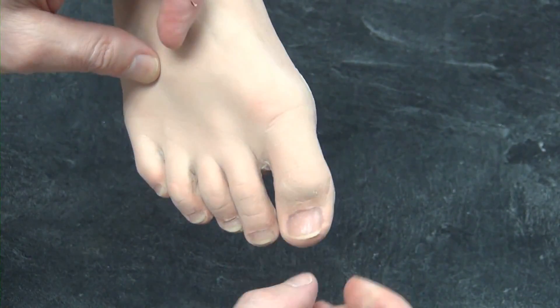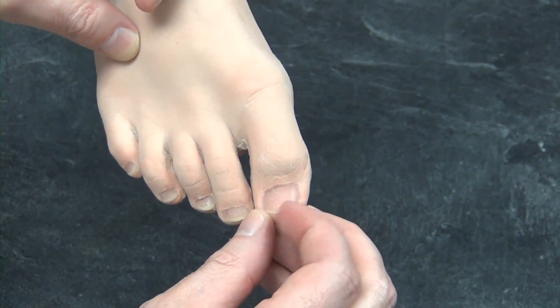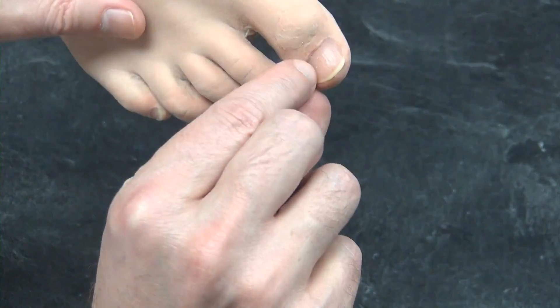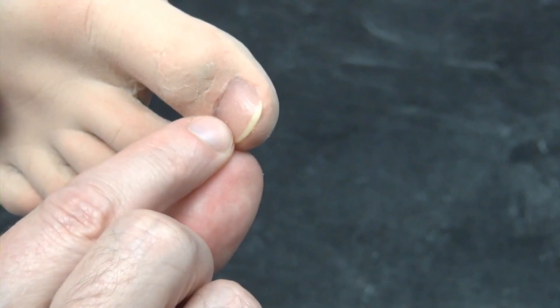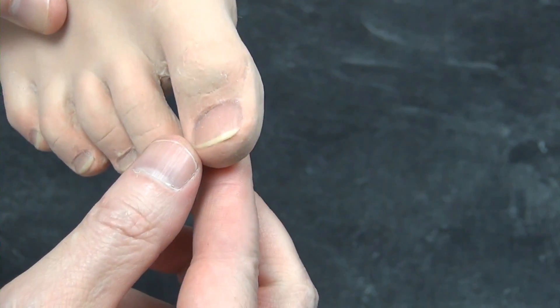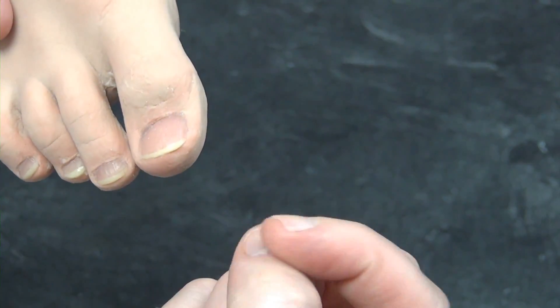We also have acrylic nails made just like the material from the salon, so people recognize the smell. They even have the texture and lines in the nails, so you get the kind of surface texture that you would see on your own nails.